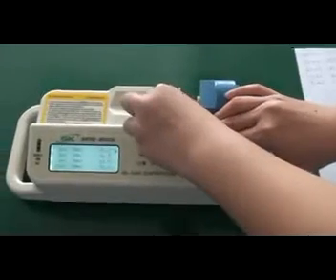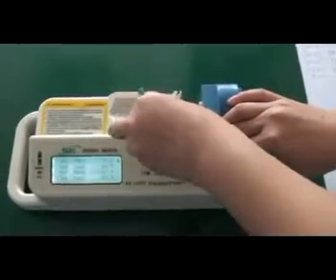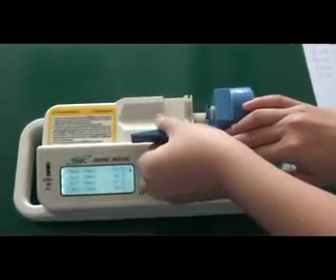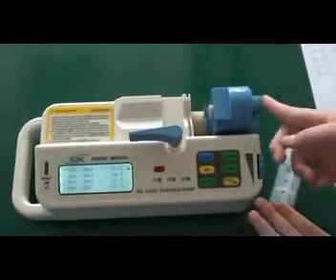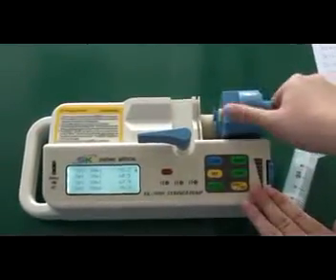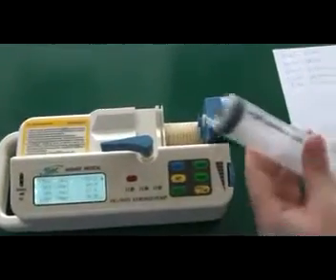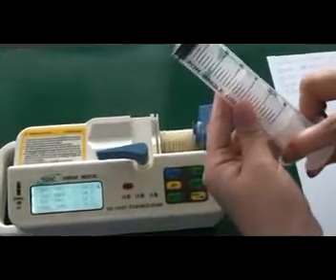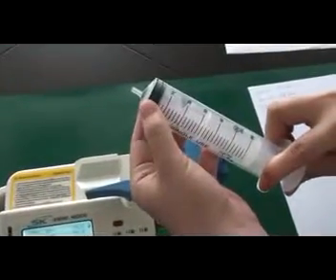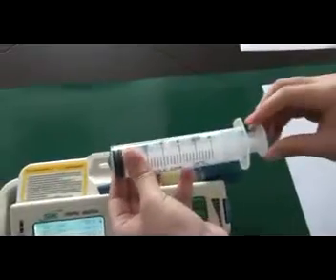Pull the compression strut upward and turn it leftward 90 degrees. Press this button to move the piston freely. Make sure no air is leaking here.